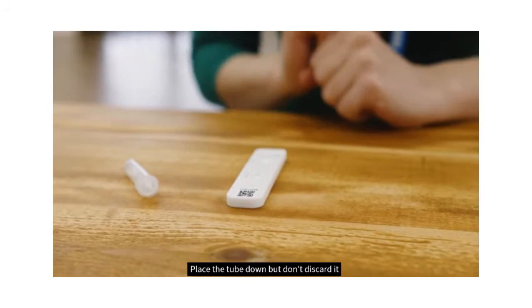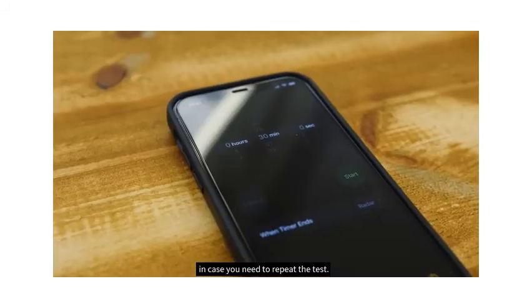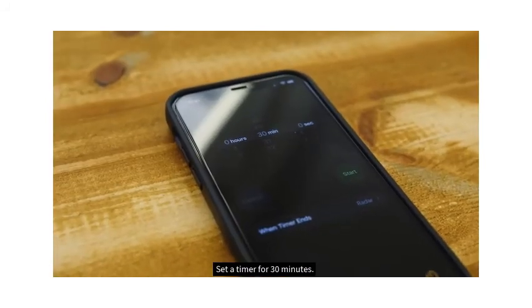Place the tube down but don't discard it in case you need to repeat the test. Set a timer for 30 minutes.